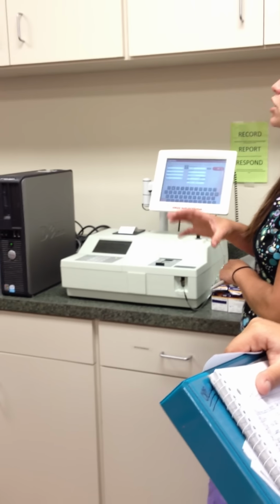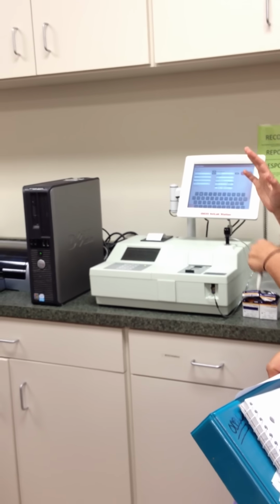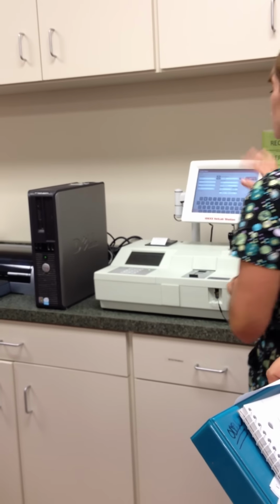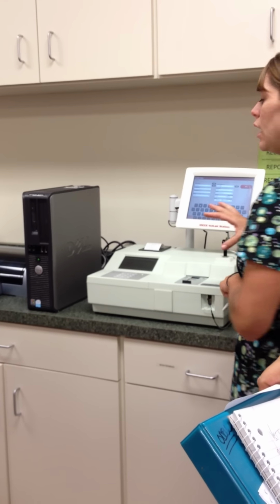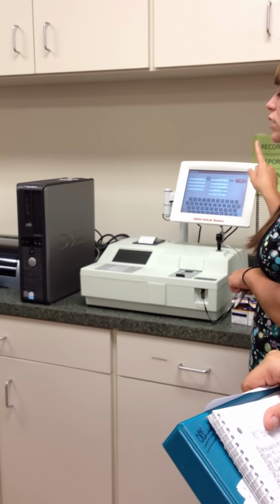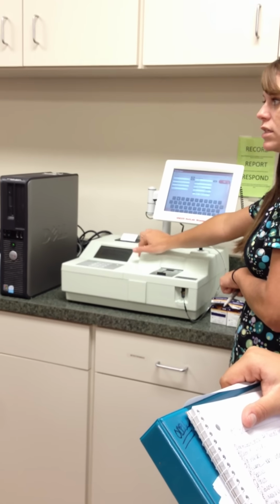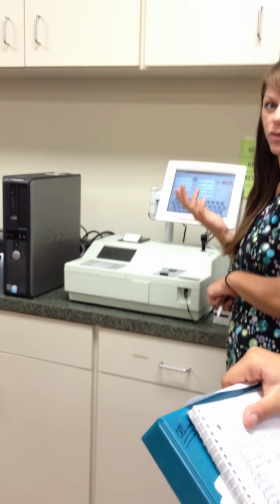The life stage is what constitutes or helps the computer decide what the normal range is going to be for that patient, okay? So once we have all that information filled in, then you're going to go ahead and hit next. One important thing before you hit the next one is that you make sure it's on the main screen down here, because if it is not, it will not transfer properly to the vet test machine, and then you get to start all over. Yay.